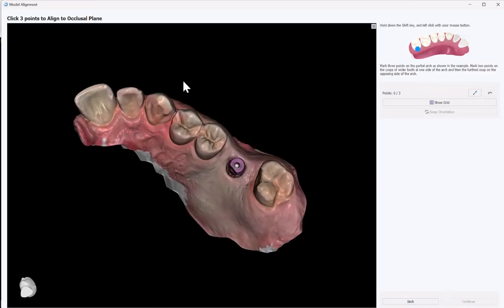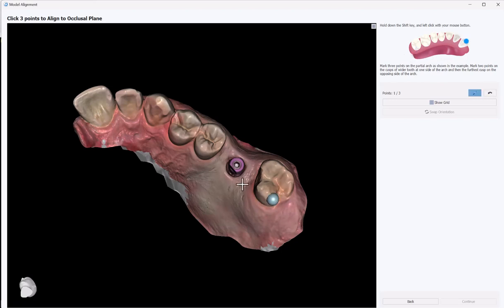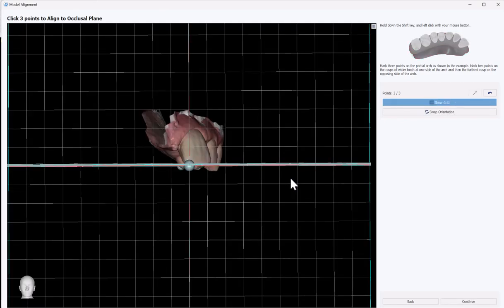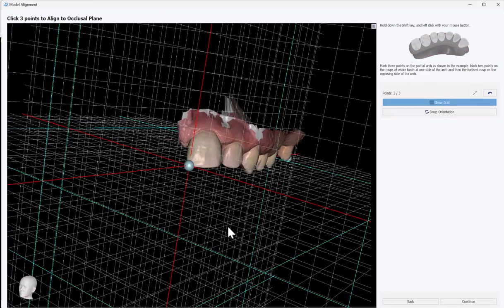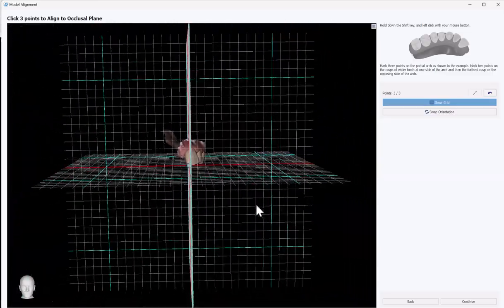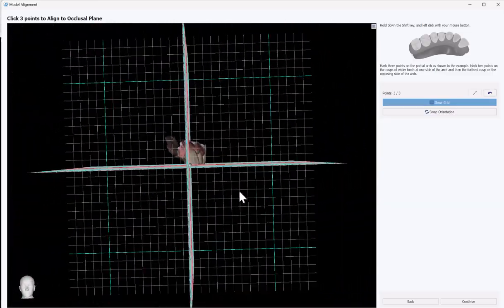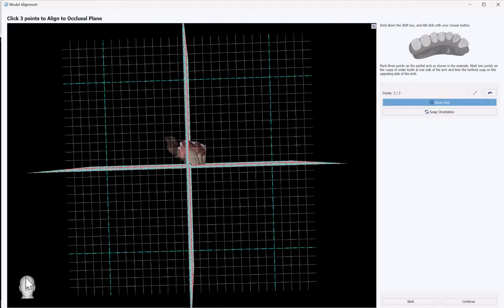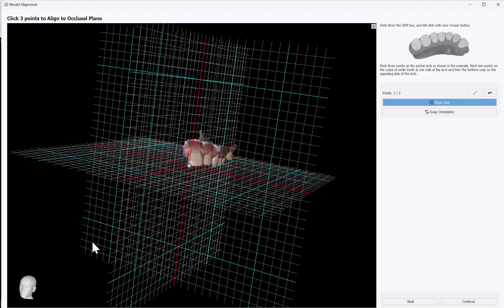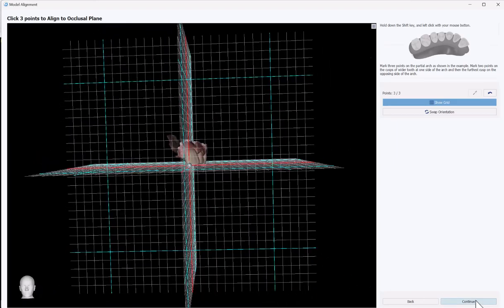Now we're going to be placing three dots to create a horizontal plane following the indications in the image at the top of the screen. I'm going to hold down my shift key, place the first dot, place the second dot, and place the third dot. We now have the model aligned in space according to the grid to match the alignment of the head that we have in the bottom corner. Click the continue button.